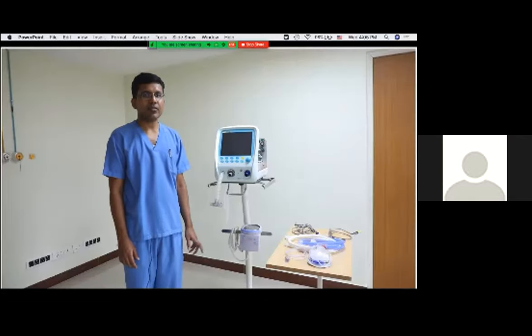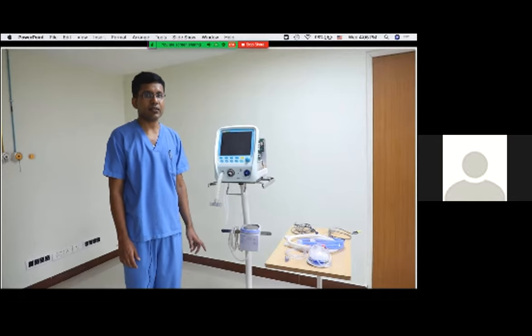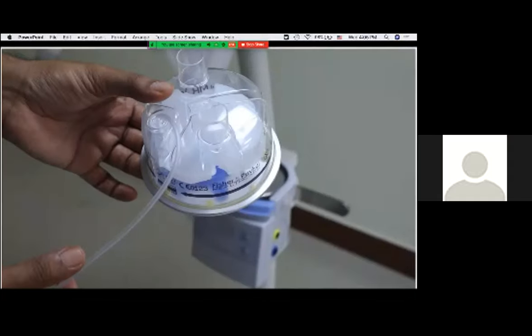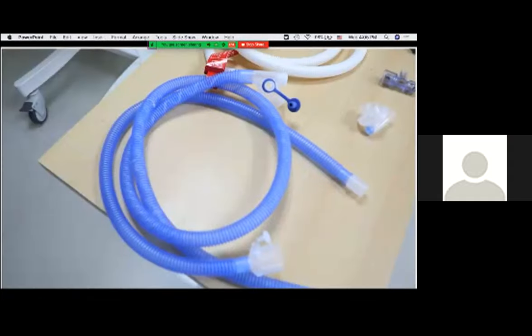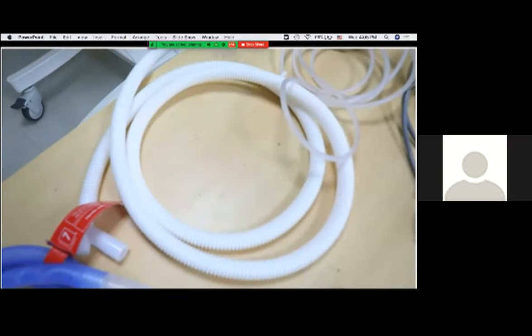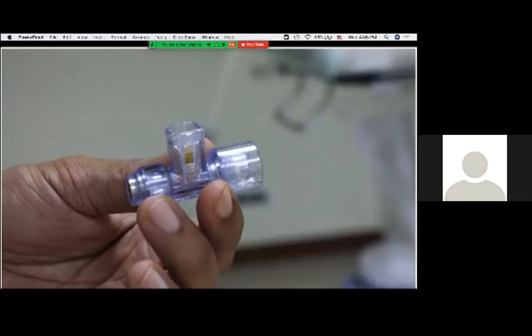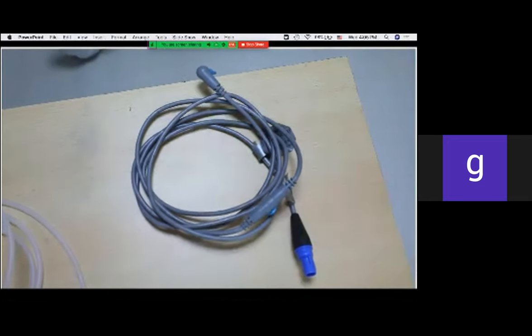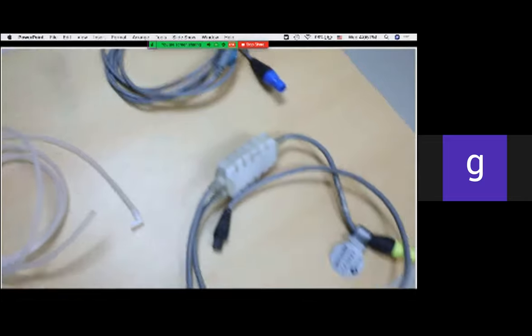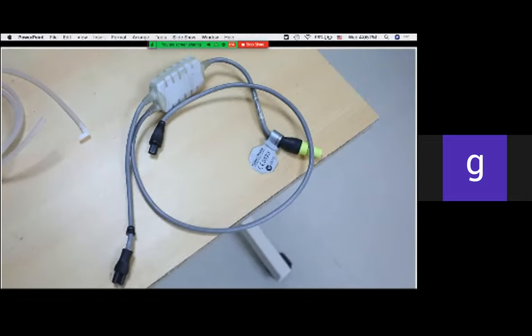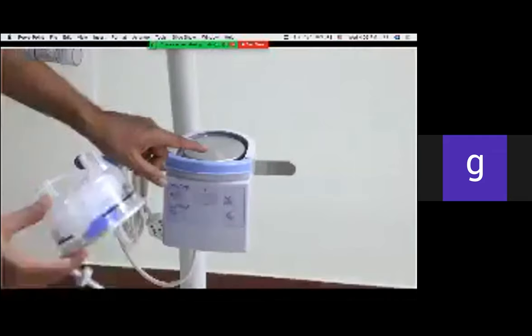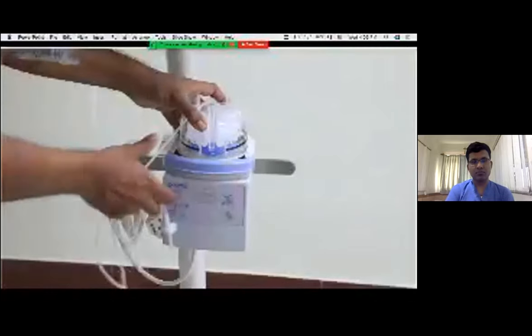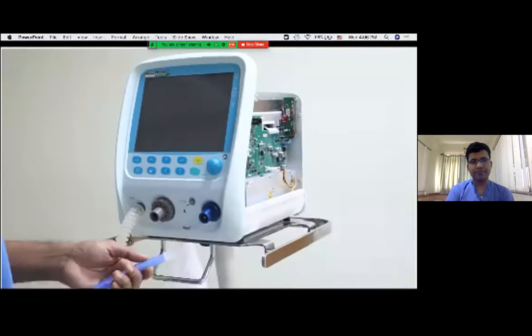I will now explain the parts of a ventilator circuit. We are demonstrating on a Fisher and Paykel circuit. This is the humidifier base connected to the power supply, and this is the humidifier chamber. The blue ones are the inspiratory limbs, and this is the expiratory limb. This is the Y-piece connecting inspiratory and expiratory limbs. This is the flow sensor and this is the pressure sensor. We also have a temperature sensor attached to the inspiratory limb and a heater wire adapter. To insert the humidifier chamber onto the humidifier base, press the blue bar and carefully insert it until you hear the click.